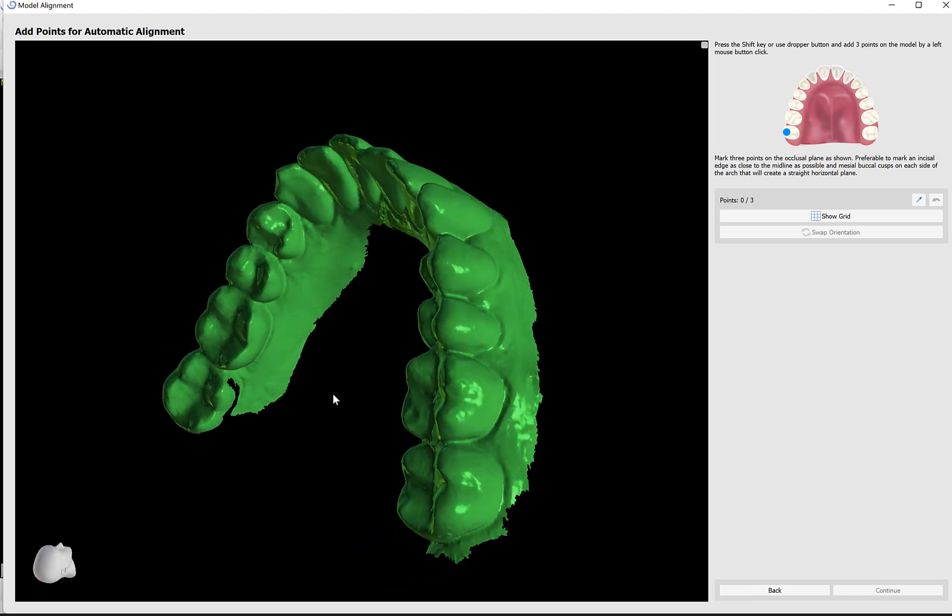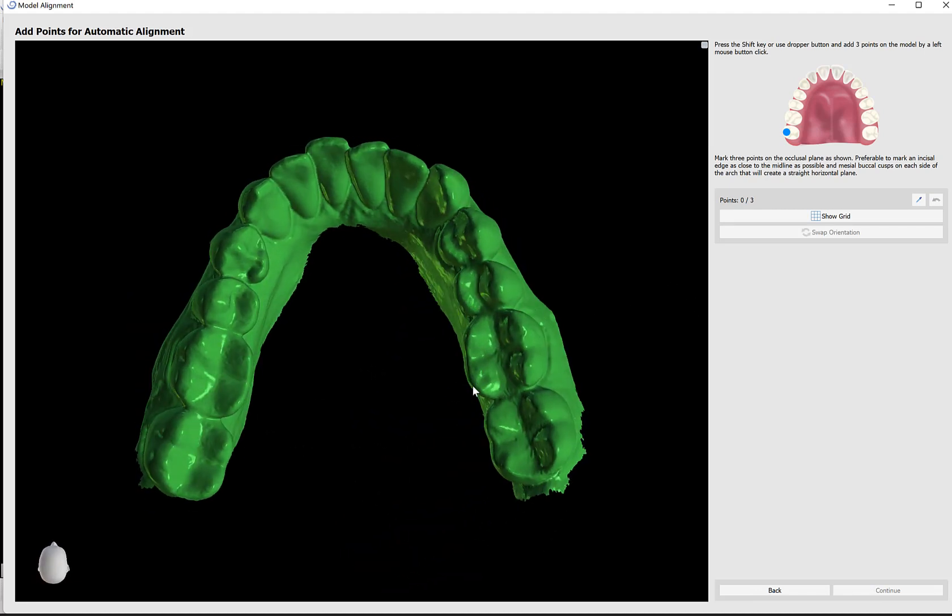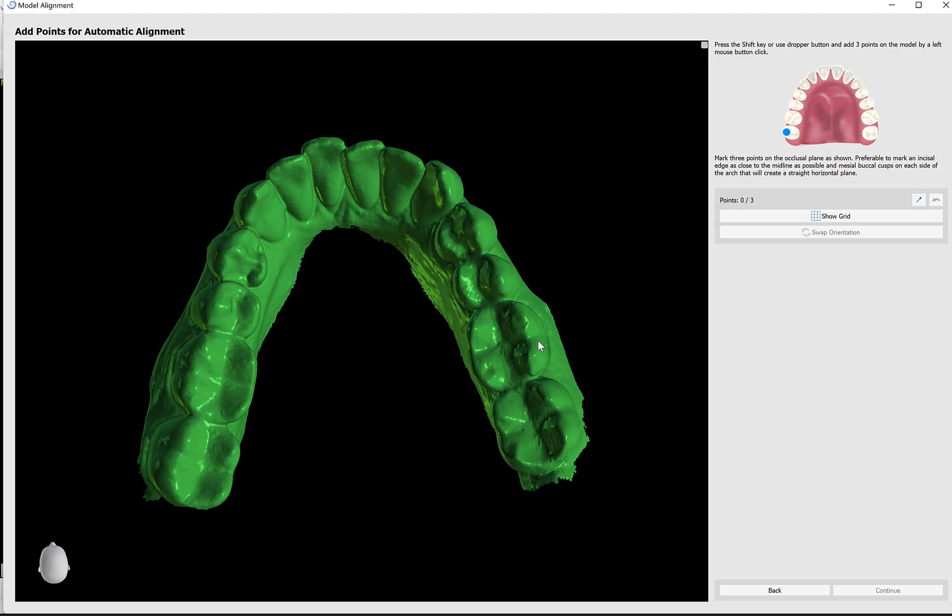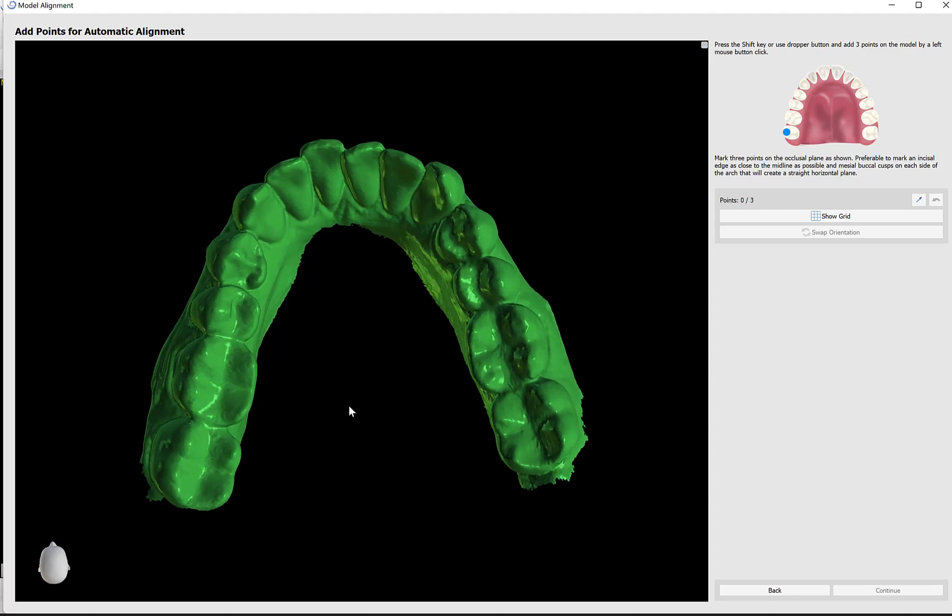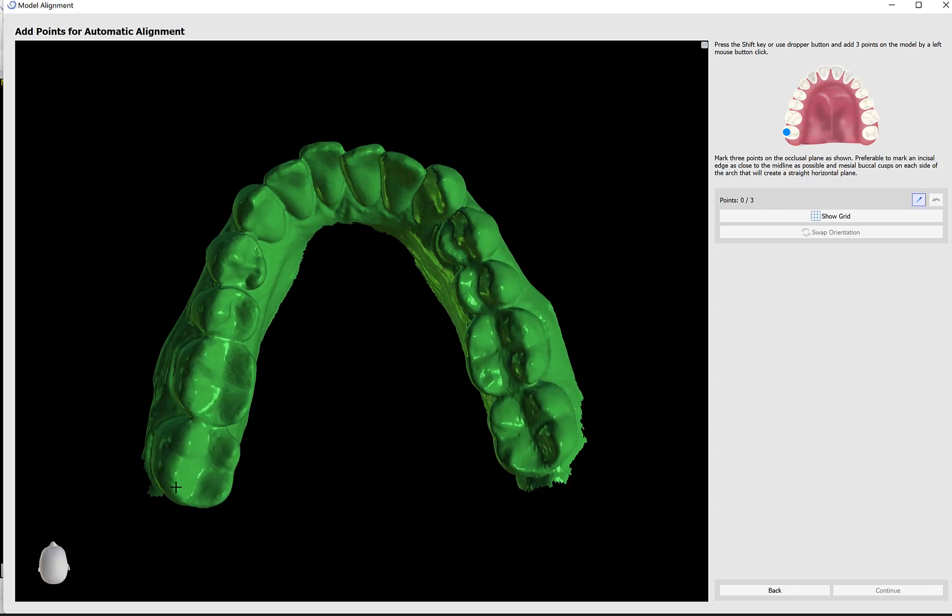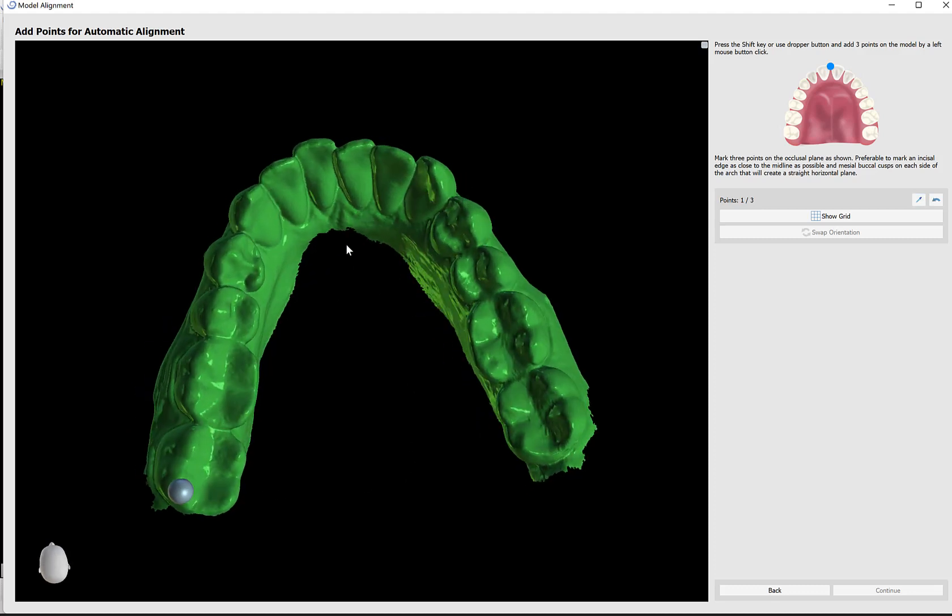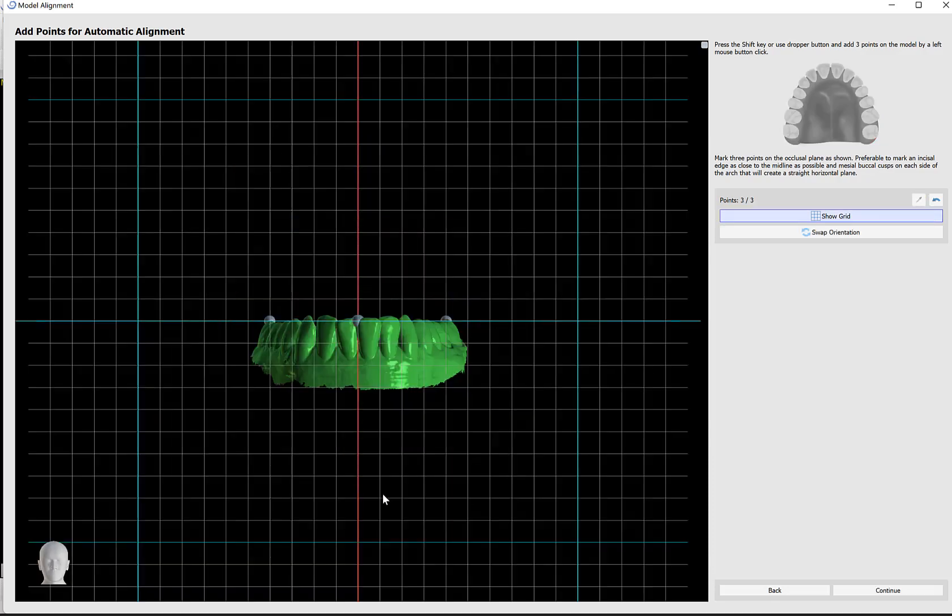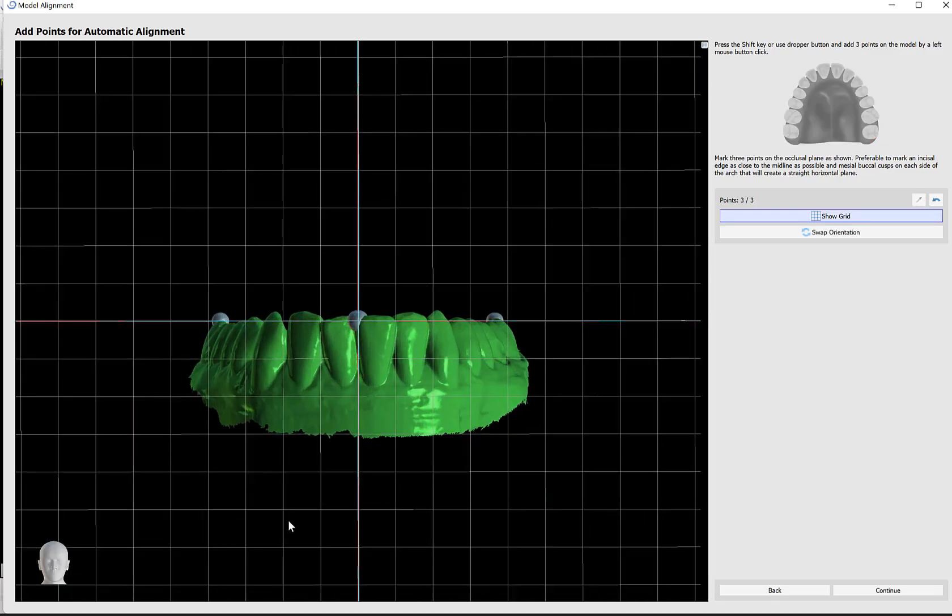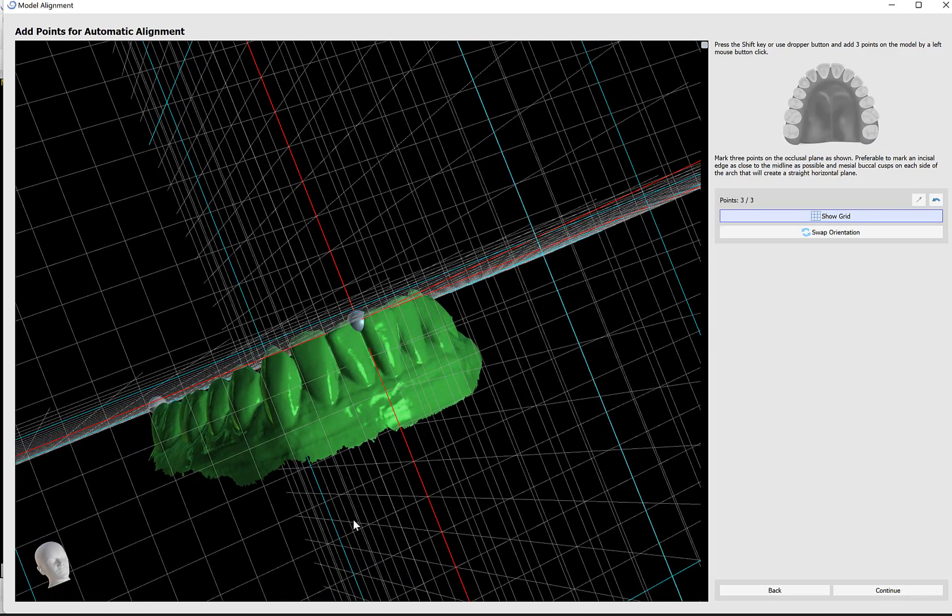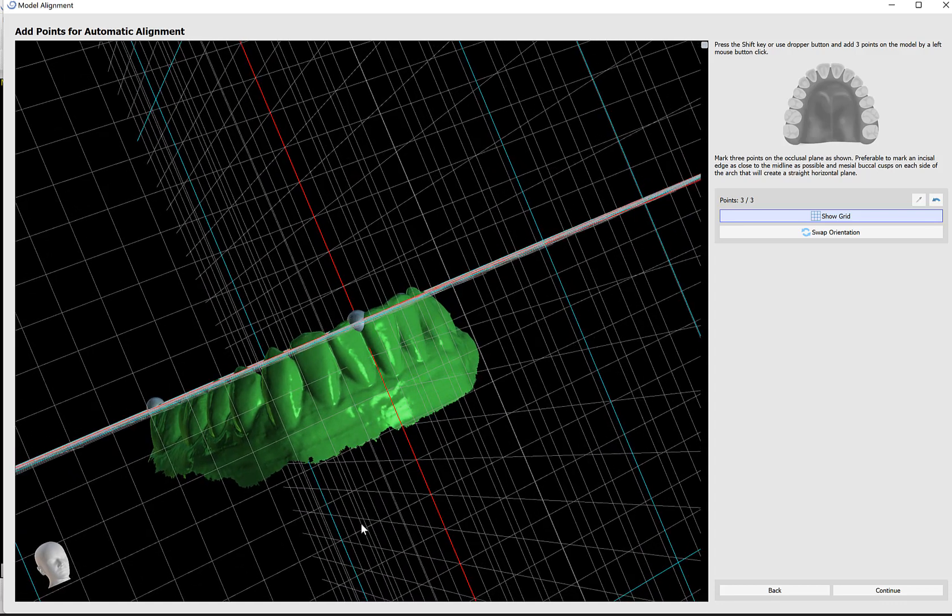Use your left mouse button to grab, drag, and rotate the model to orient it properly as per the illustration. We're going to be placing three dots—three points that are going to be aligned to the horizontal plane of our grid. I'm going to mark the three dots according to the illustration on the top right. Hold down shift key and left click once, left click again, and third time.